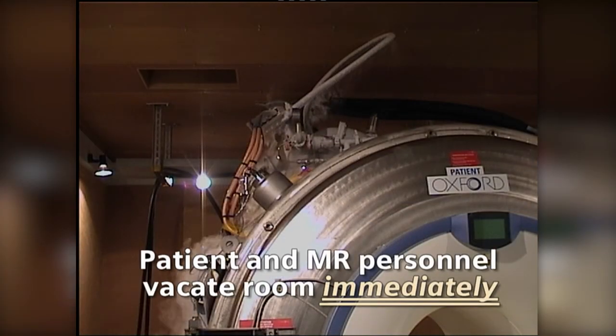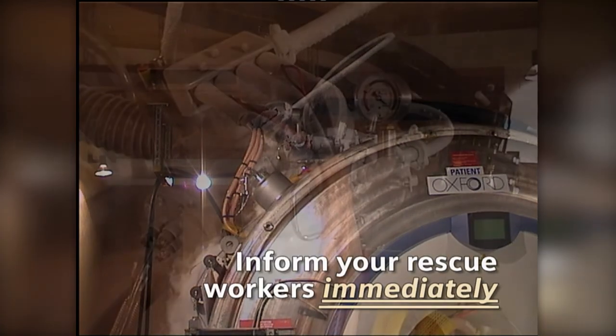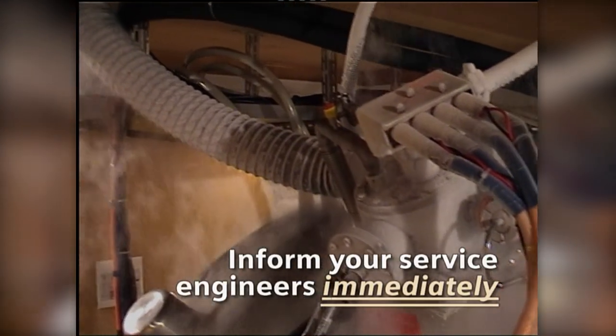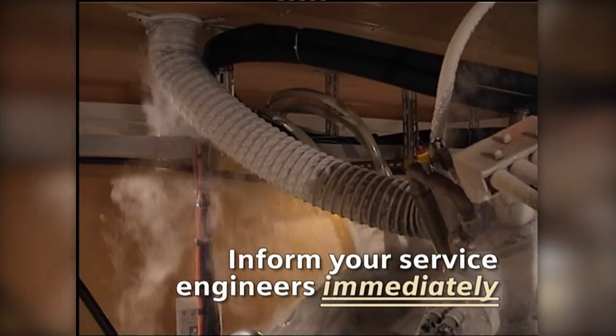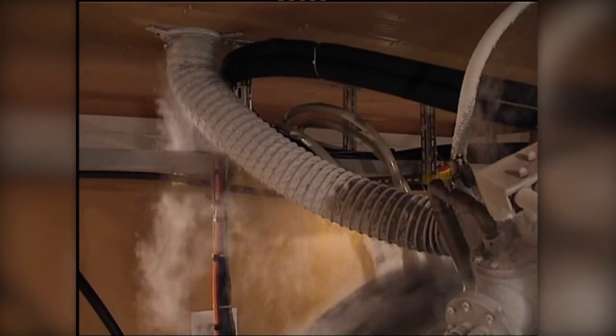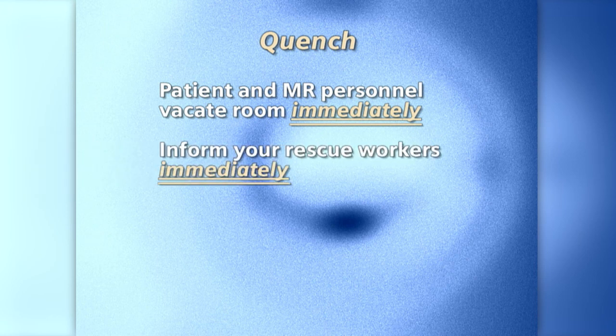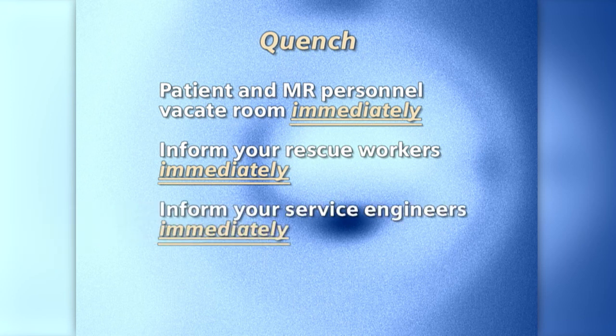If possible, leave the examination room with the patient prior to pressing the magnet stop switch and inform the service department immediately. A quench is quite expensive because the escaped helium has to be replaced. Quench. Patient and MR personnel vacate room immediately. Inform your rescue workers immediately. Inform your service engineers immediately.